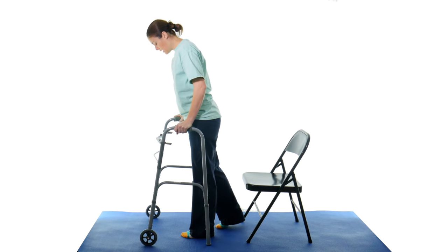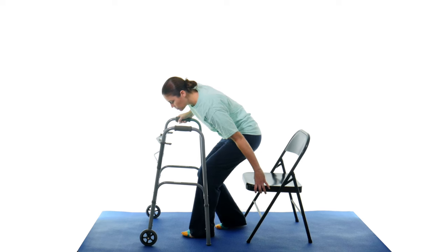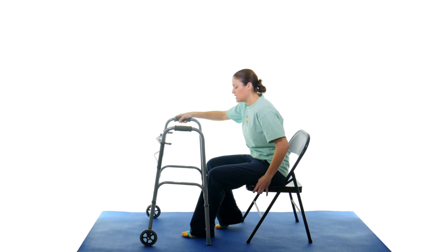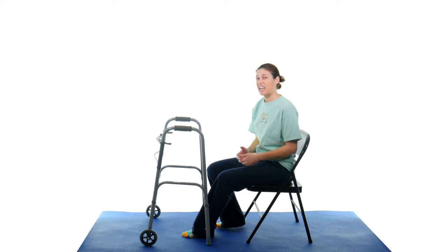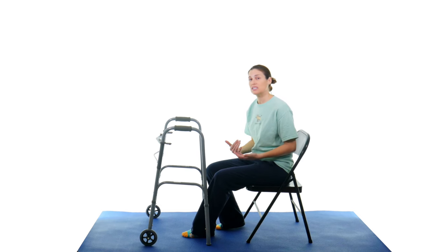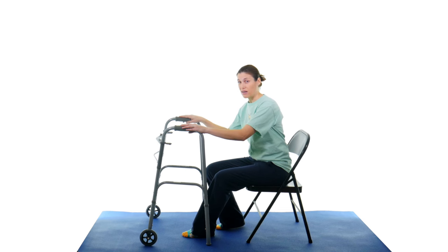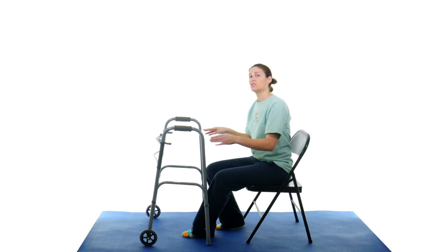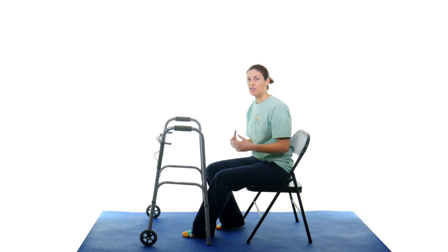And the same thing, put that stronger leg back just a little bit, start reaching back for that chair. As soon as I find it, then sit down and then I can scoot back in. So it's as simple as that. It seems simple, it looks like it should be simple, but it really is a little bit more complicated if you have the walker and you're really relying on that walker for safety, but that's really the safest way to do it. So make sure you're practicing. Make sure you have somebody there with you to practice so they can help you safely do it if needed.